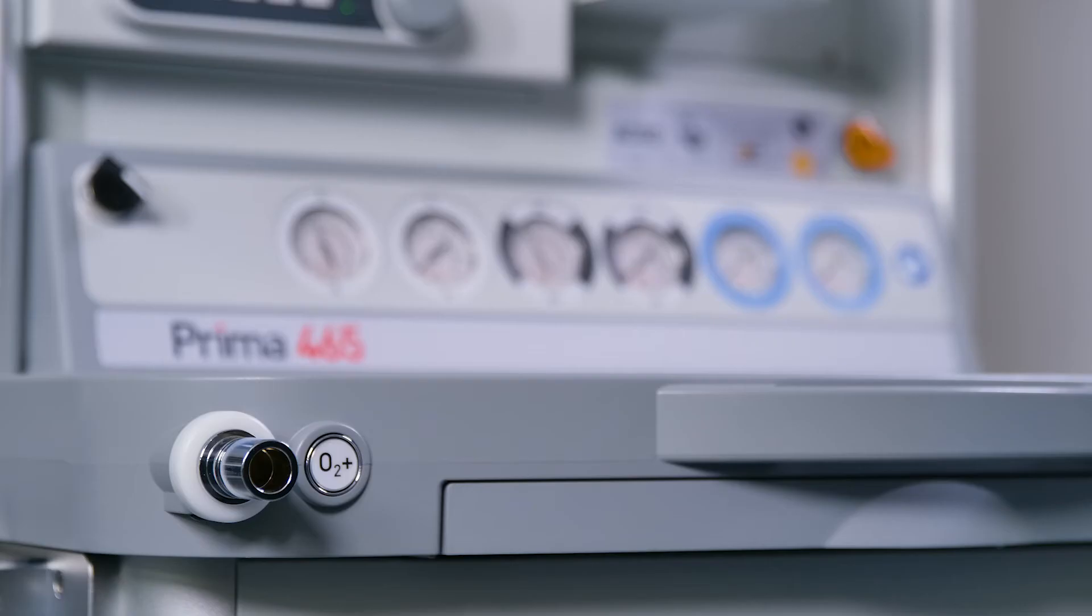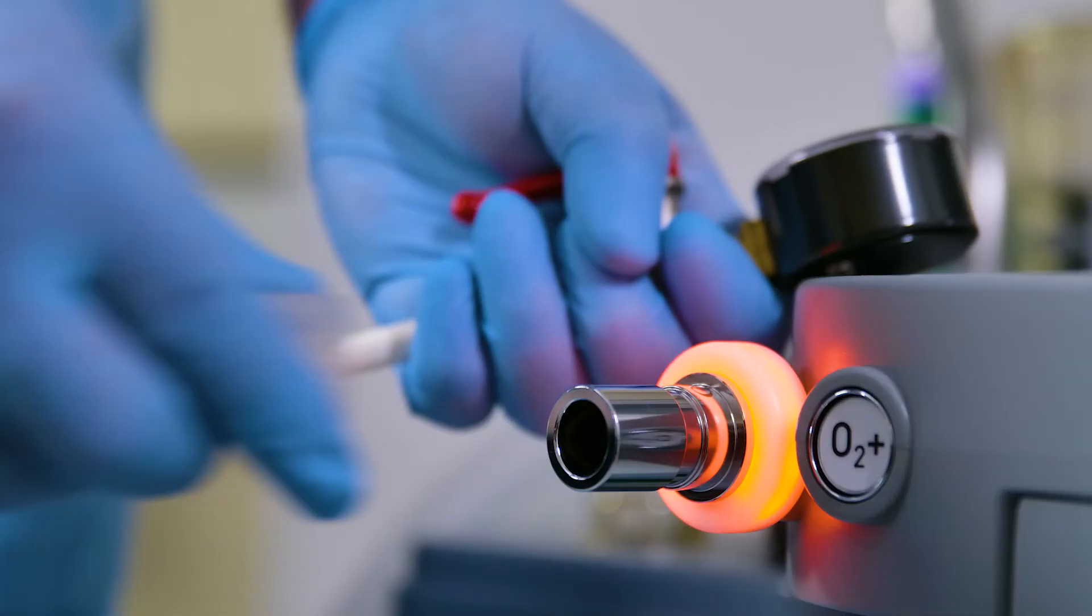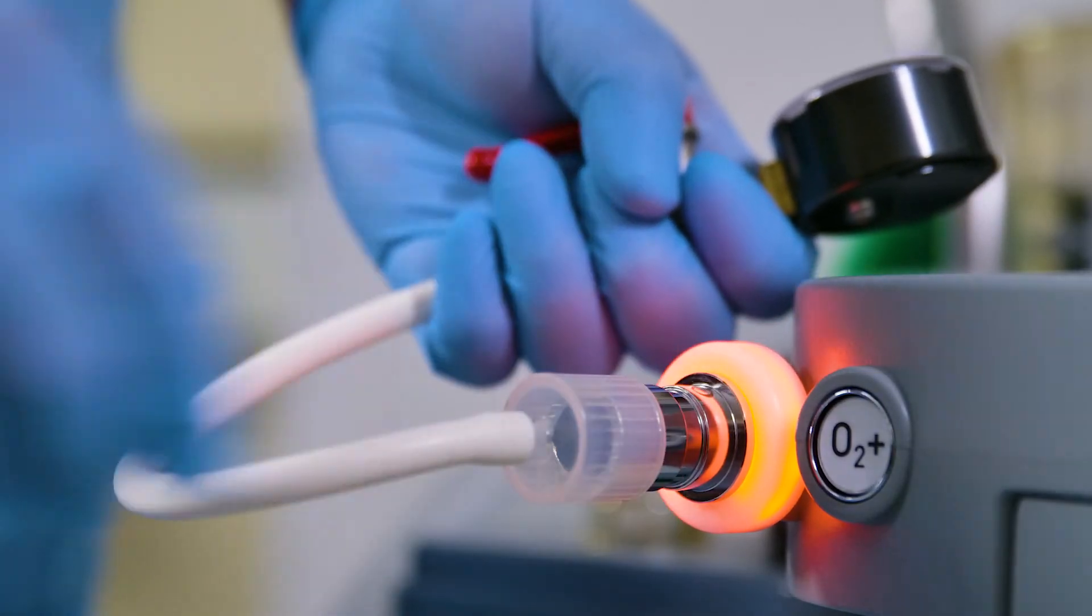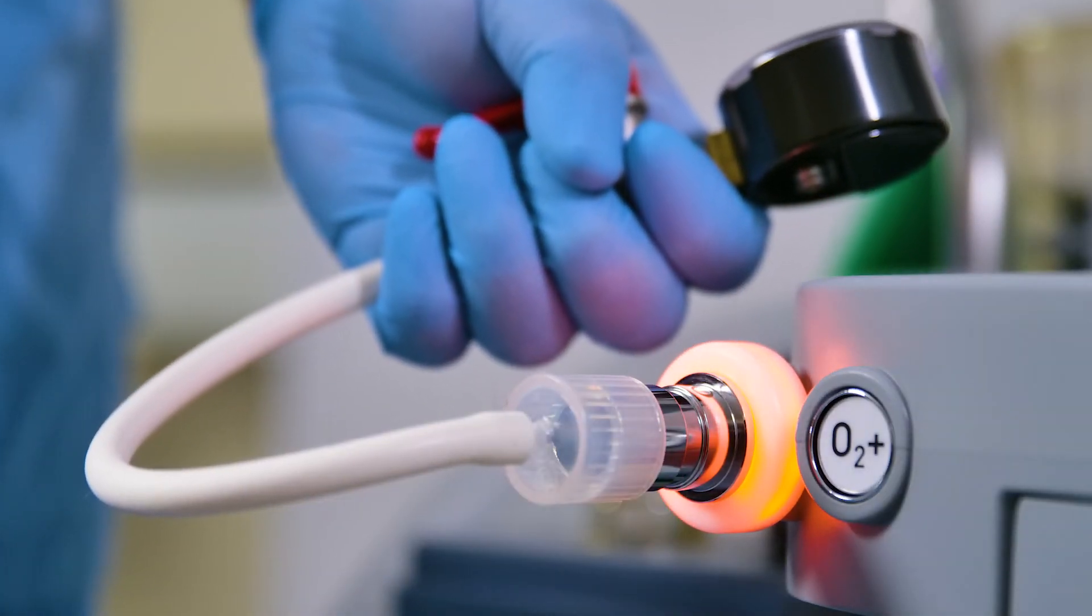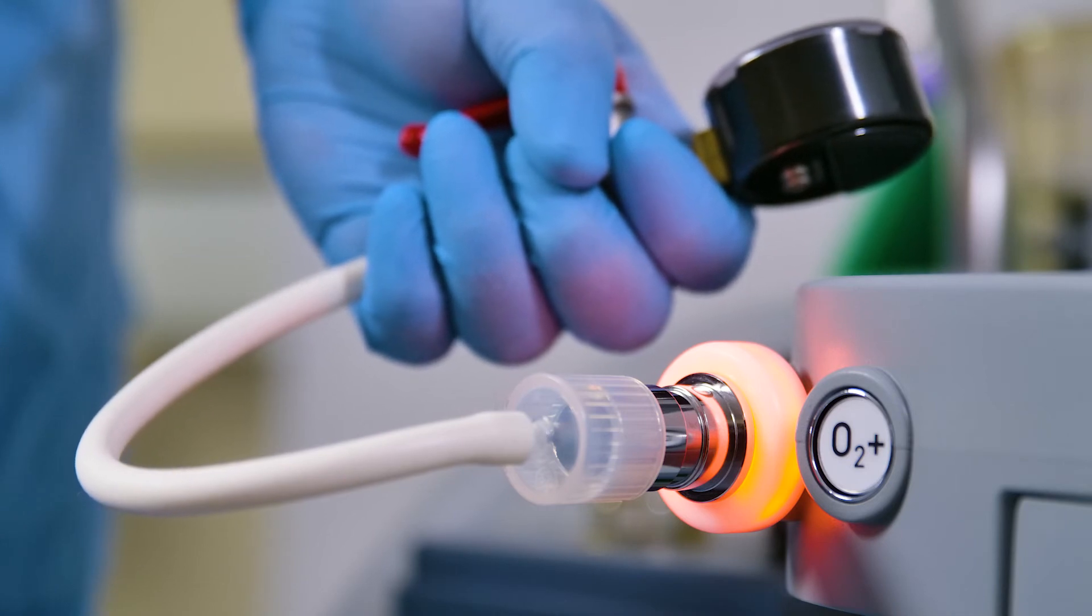Anesthetic Machine and Sigma EVA Vaporizer Leak Tests. Ensure the leak tightness of the anesthetic machine by performing a backbar manifold leak test as detailed in the Anesthetic Machine User Instruction Manual, then as detailed in the Sigma EVA User Manual.